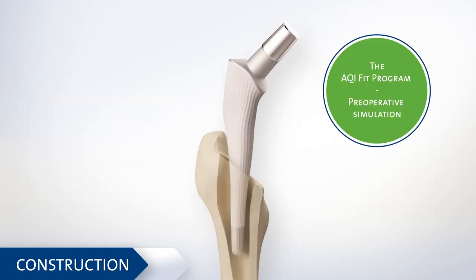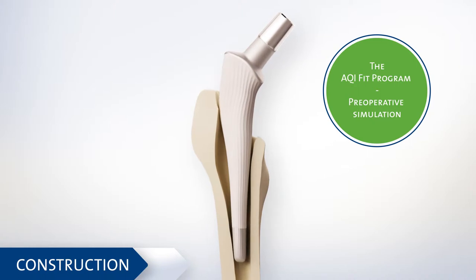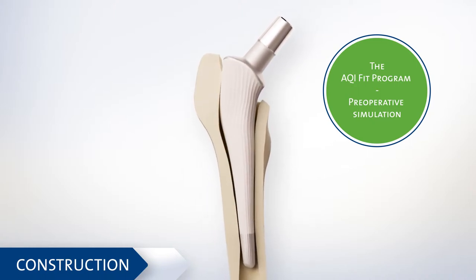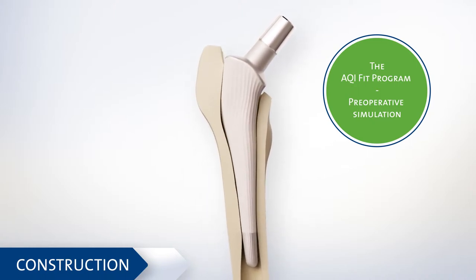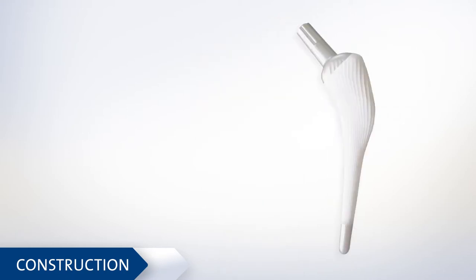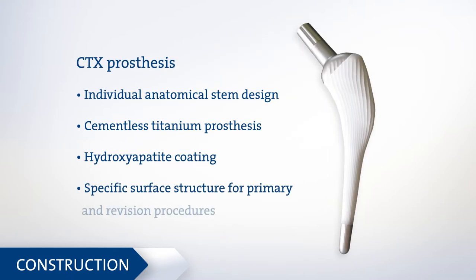The AQI Fit Program displays the fit of the individual stem design. The preoperative implantation simulation also ensures a correct surgical implementation and completes the construction. Its dedicated product features make the CTX hip prosthesis suitable for both primary and revision procedures.